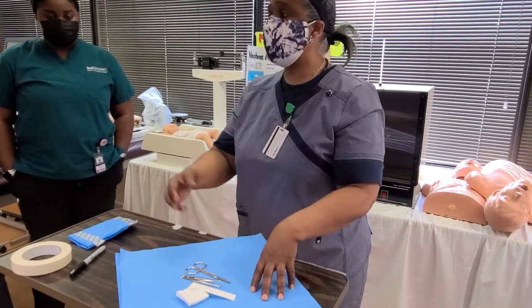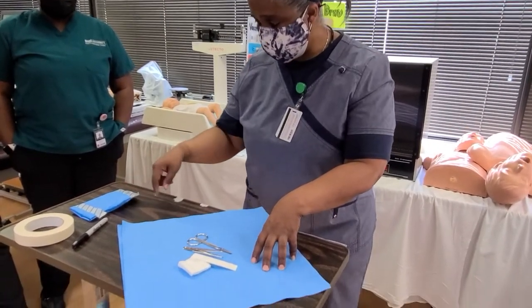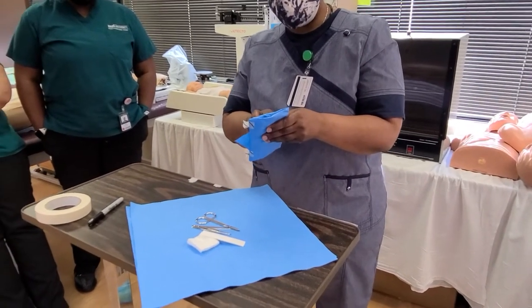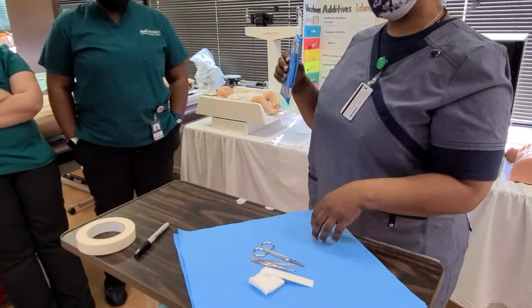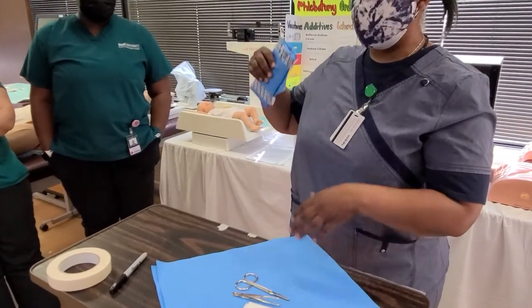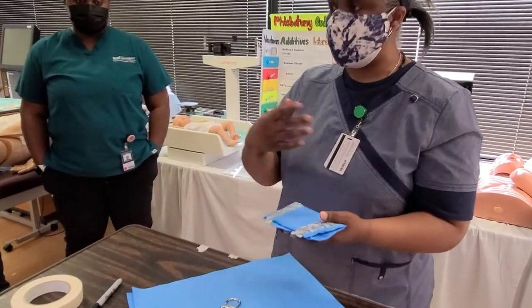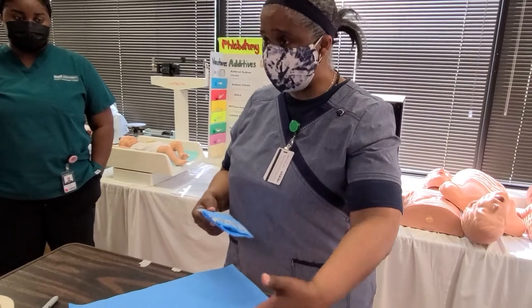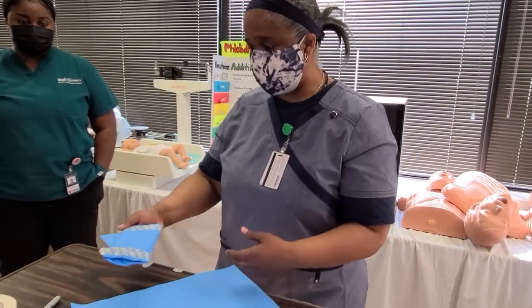That one has six months minus one day. Same thing I'm going to write on here. As you can see, they put their initials and when it expires — May 12th — which means I need to already discard this. But not really discard it; what we would do is unwrap it, then re-sanitize the instruments and re-wrap them.